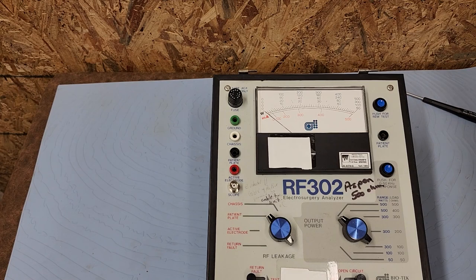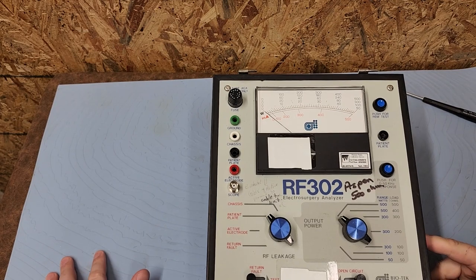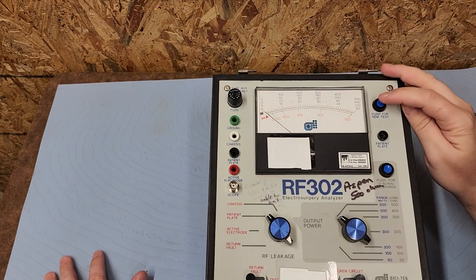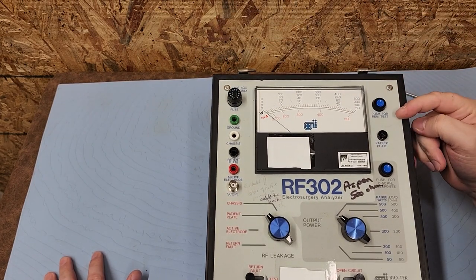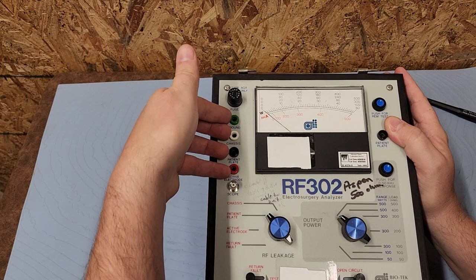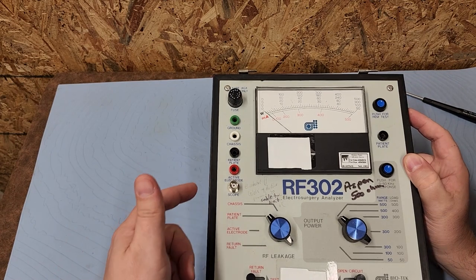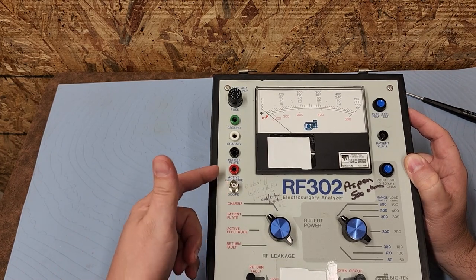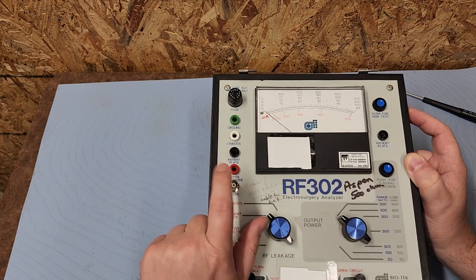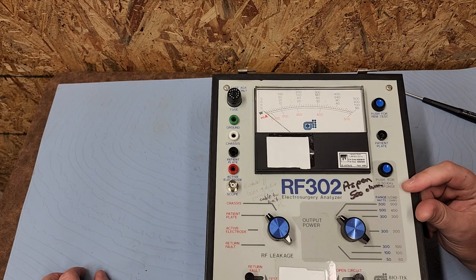Let's get to the meat and taters of this — the analog electrosurgery analyzer. Here's the infamous fuse I was talking about. I have a button that says 'Push for REM test' — I wonder what that does. I've got four banana plugs that match up with the probes I pulled out earlier. There's a label for 'active electrode' — the label corresponds to the port above it.